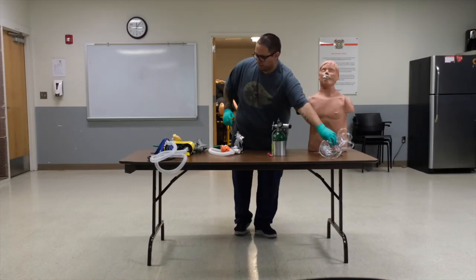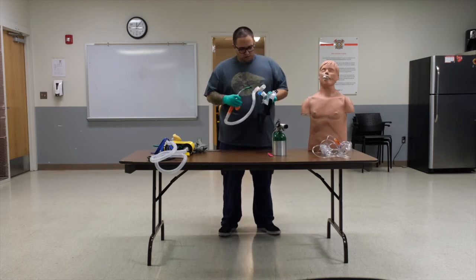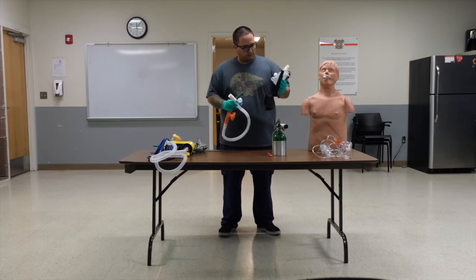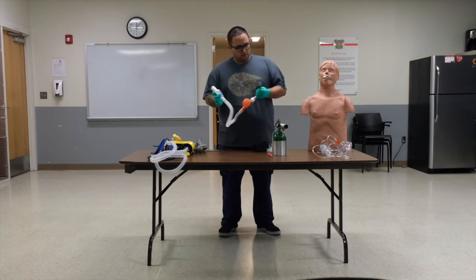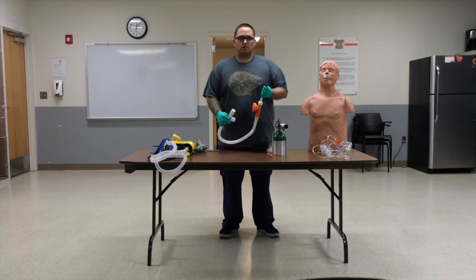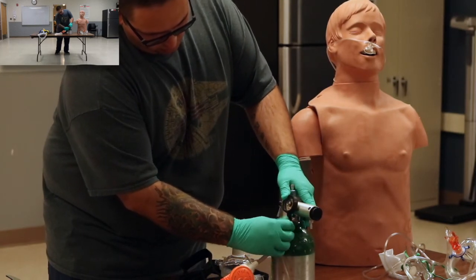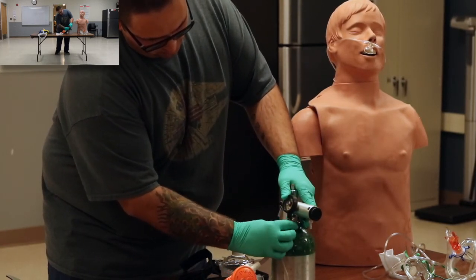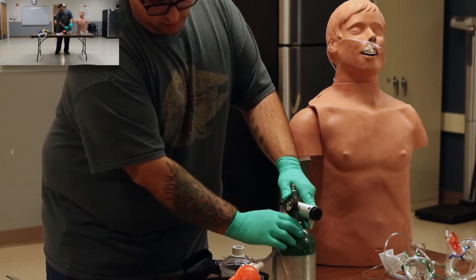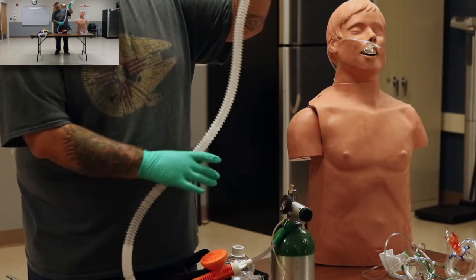The Pulmodyne is used with Albuquerque ambulance. One long disposable circuit. Mask usually comes off and is in a separate bag. Unlike the O2 CPAP, this will connect to the oxygen bypass part of the regulator. So whenever you connect that, you're going to start hearing the device working. These devices are very loud. It's going to sound like air is leaking through it. And as you extend the corrugated tubing, the machine itself actually starts to whistle.